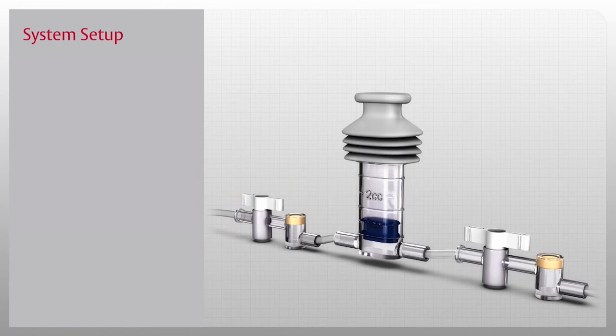Now that you've been introduced to the Vamp Junior system, let's start our in-service by setting it up. To begin, remove the Vamp Junior system from the package using aseptic technique.